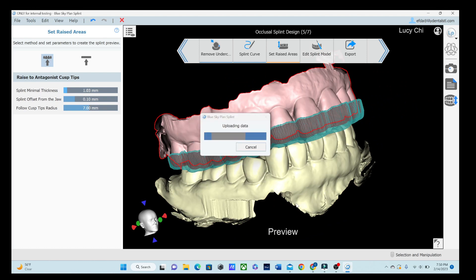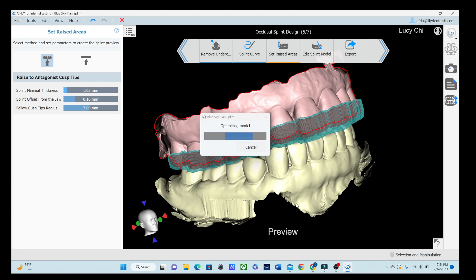So now we're going to go to edit splint model. This is going to take it just a minute. It's basically building it right now. Got to give the computer a second. You'll notice when it comes up in the next section that it doesn't look like a perfectly glassy smooth. But remember, we're looking at it about ten times as big as it is. It's going to be a lot smaller. And you're also going to be either hopefully polishing or kind of candy coating these with an extra layer of some smooth resin on top of it and then curing it, so whatever it is. So I don't worry too much about it if it looks just a little bit rough or not because I know that I'm going to polish the whole thing. So I'm not too terribly worried about that.